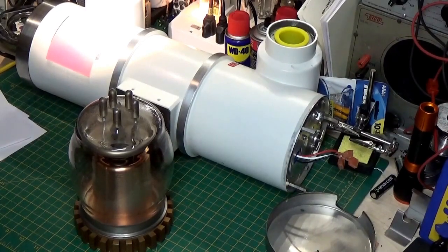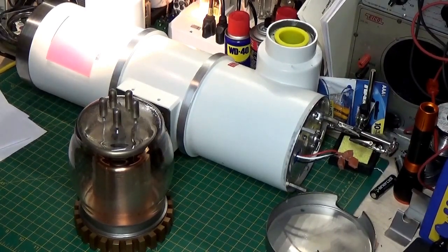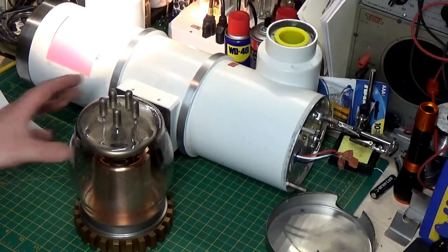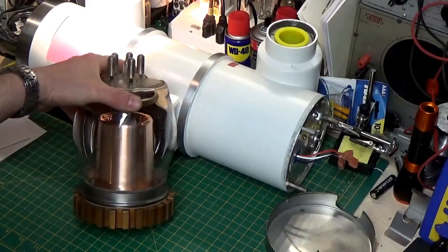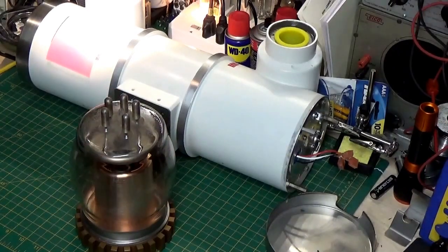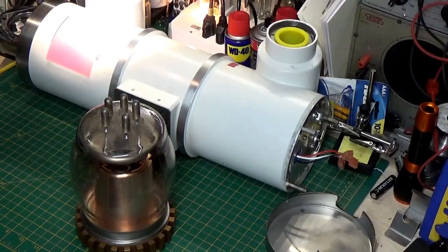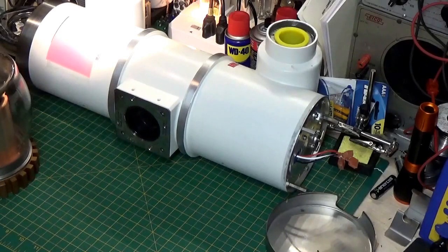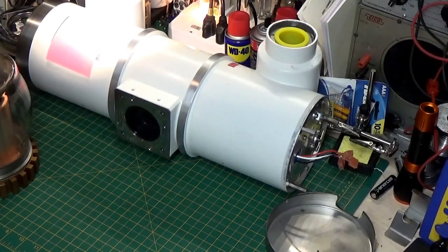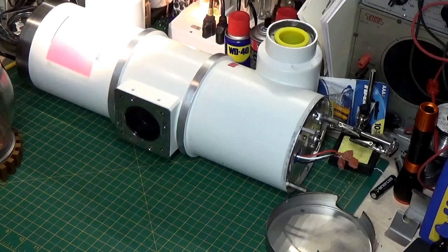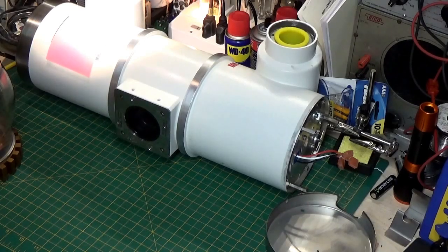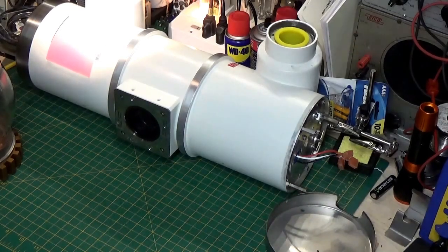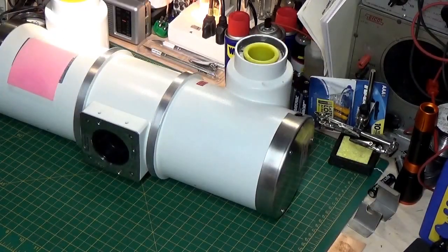So, but I always thought this was just too cool to get rid of. So, anyhow, that's just a very, very skimming the surface idea of x-ray. We could talk a whole lot about the history of it and the science of it. But this should give you a basic understanding.